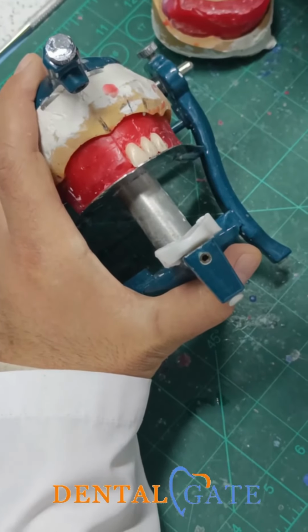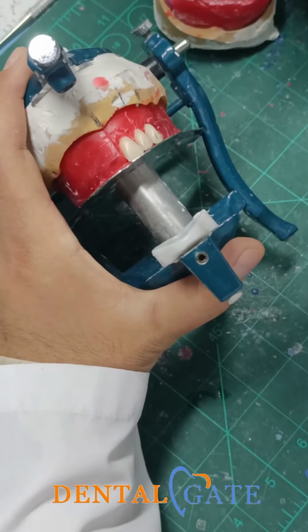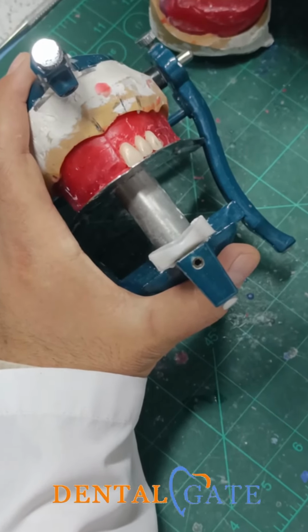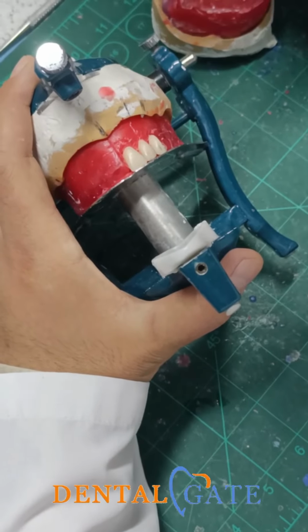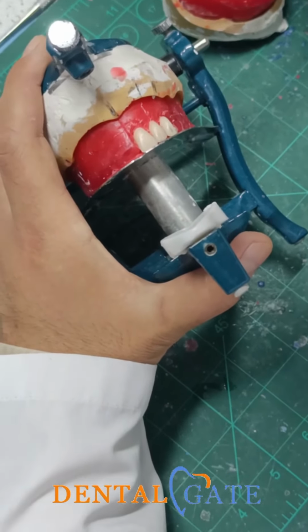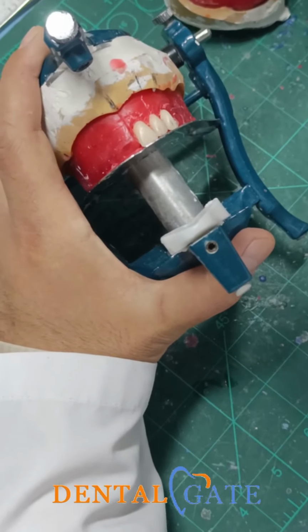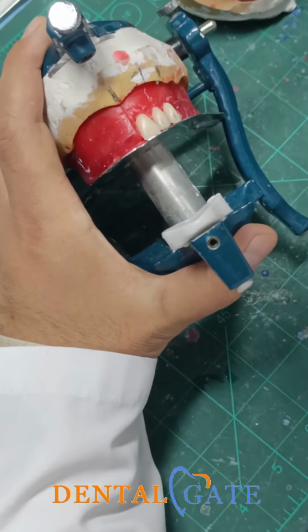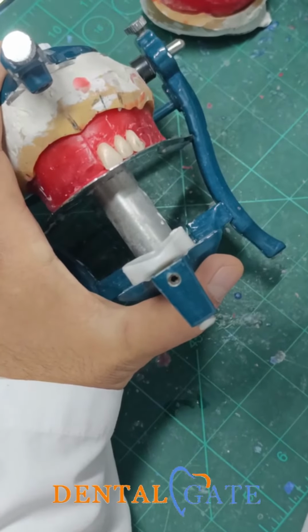So put the teeth in the vertical axis now, because in the initial practical work, you cannot perform all criteria. So start with the more fundamental ones. After that, add the advanced features. This is my recommendation for the beginner.